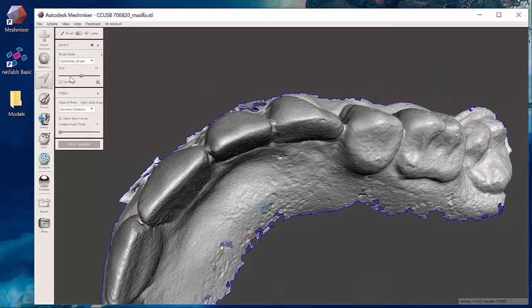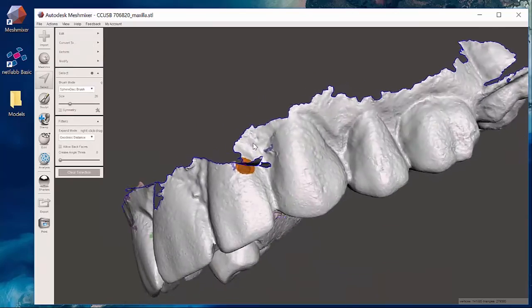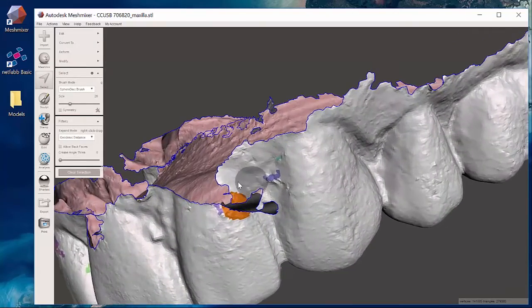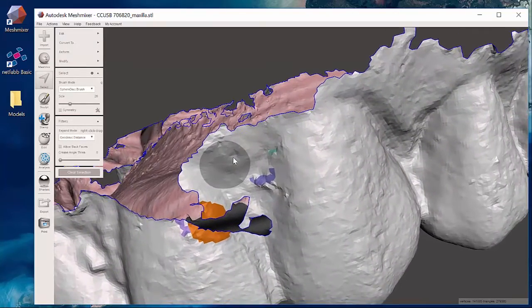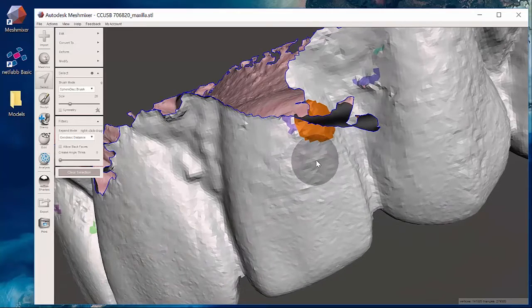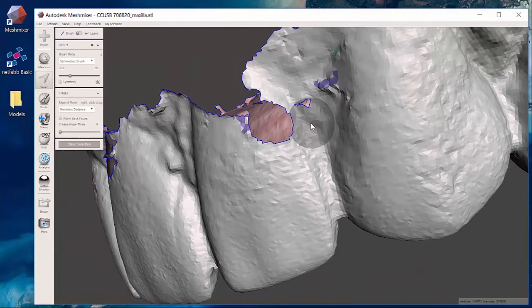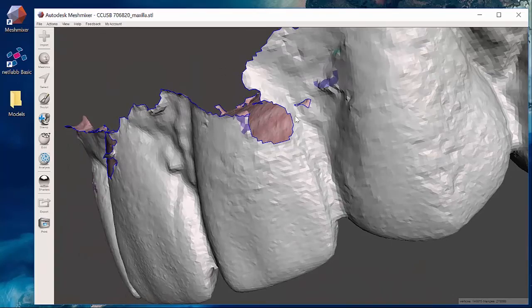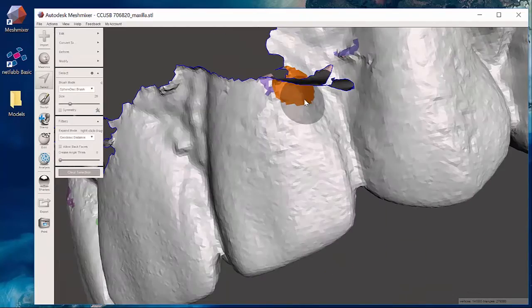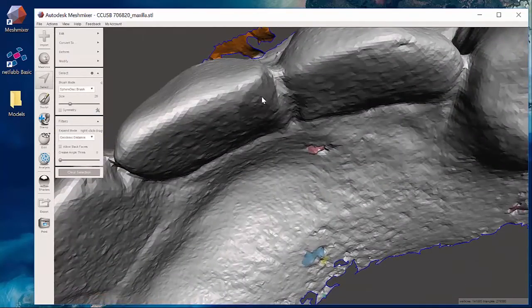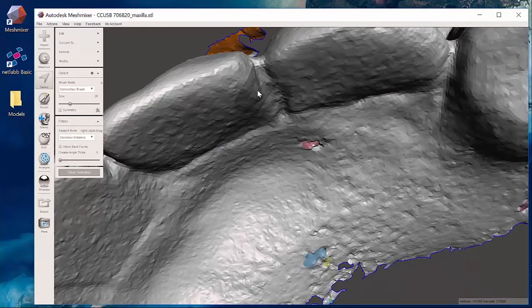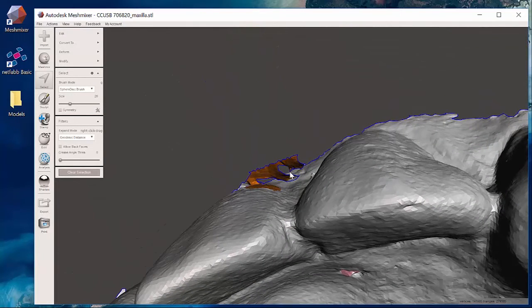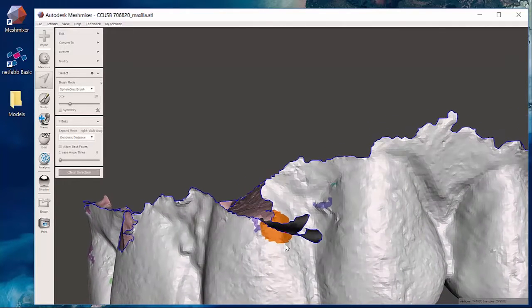If I do that and right in here is the easiest way, just to select that with that sphere tool. If I click on this and I notice, oh I don't want to get rid of all of that. If I hit my actions undo and undo feature I'm back to here. All I want to do is delete this area right out in here. So I'm going to clear all of this away but I want to keep this part of the tooth.